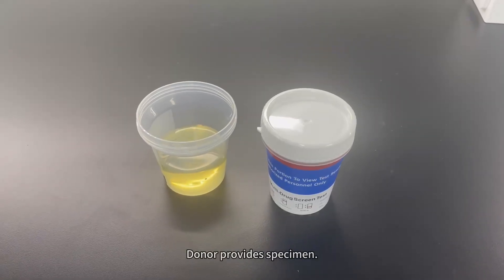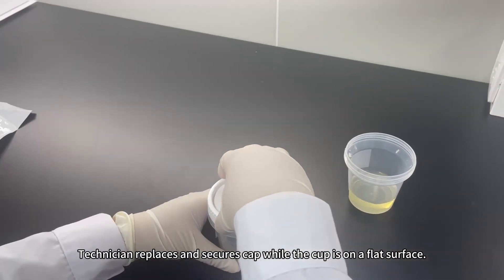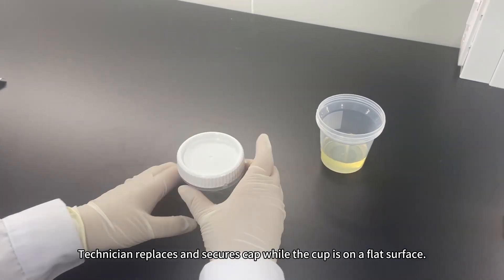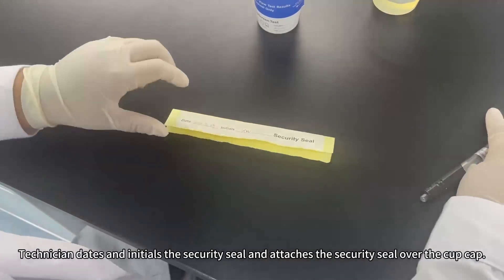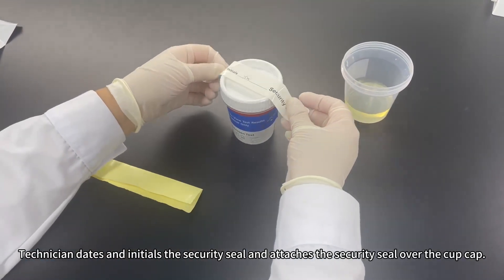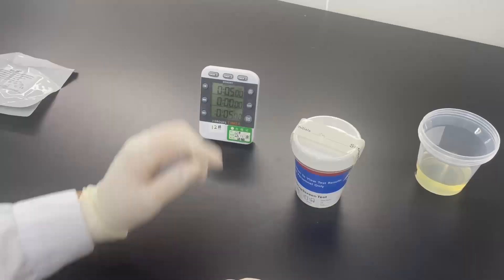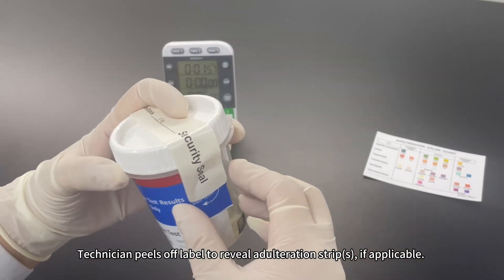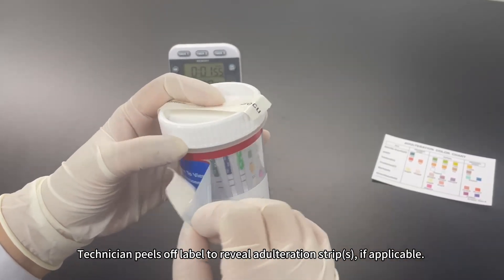Donor provides specimen. Technician replaces and secures cap while the cup is on a flat surface. Technician dates and initials the security seal and attaches the security seal over the cup cap. Technician peels off label to reveal adulteration strip, if applicable.